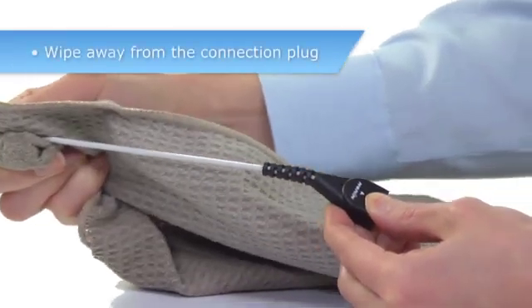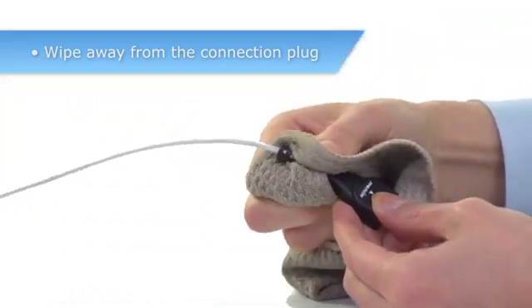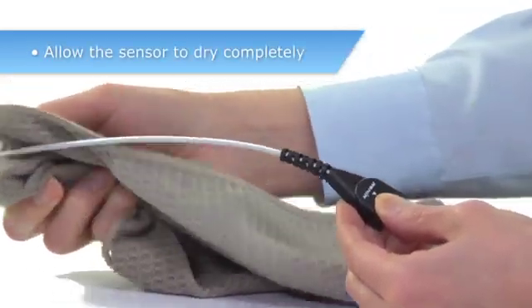Allow the sensor to completely dry before the next application.